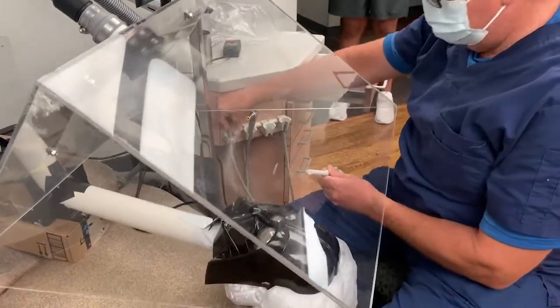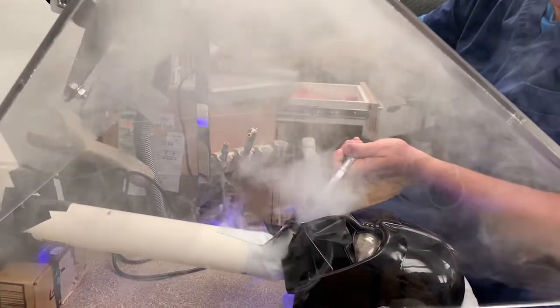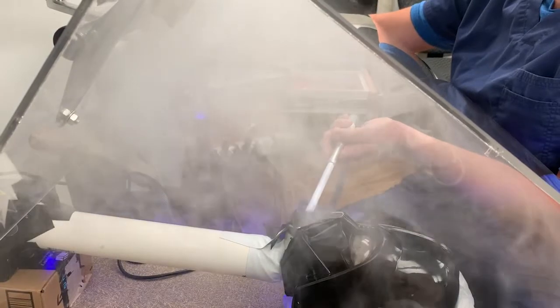This is what most dental offices rely on for their suction. Now if you notice, it's getting probably — they say 90% — it's getting a lot. But look at the air in here. Look at how much it's missing. And even once it gets away from the mouth, look at what happens when I turn this in here. All this gets into the air.